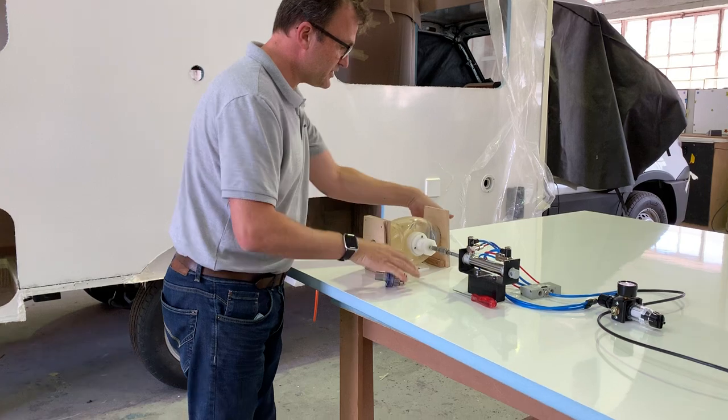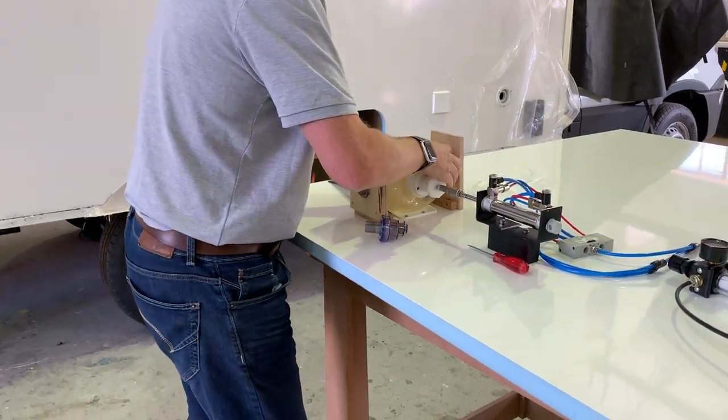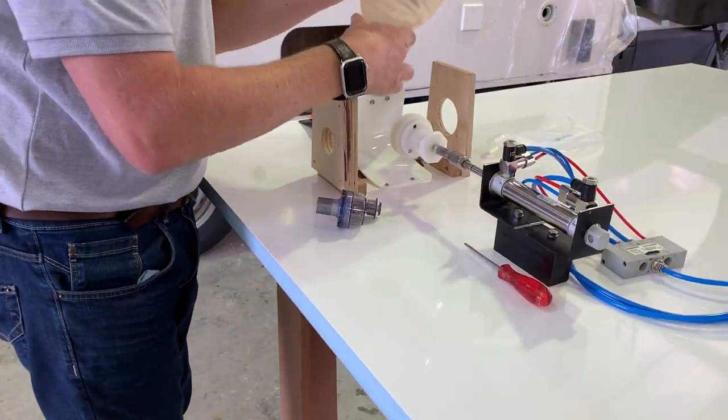It's fully adjustable. Also, it's very easy to get the BVM in, so it just goes in, out, and then back in again. So it's easy to replace.